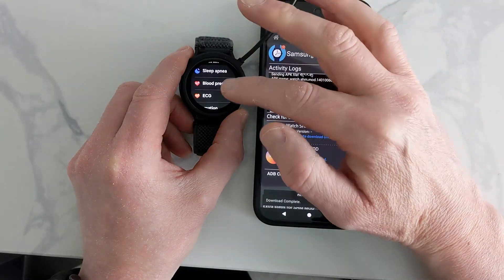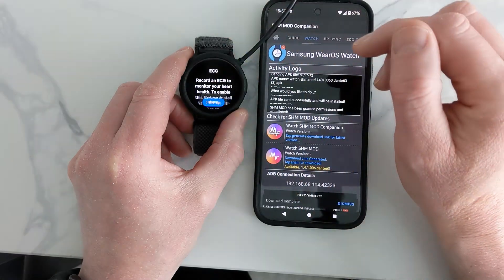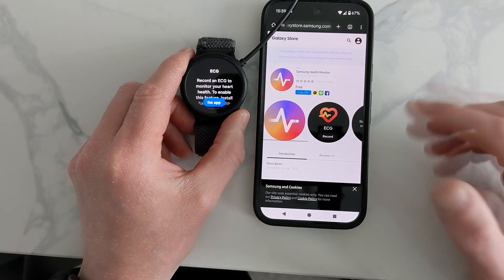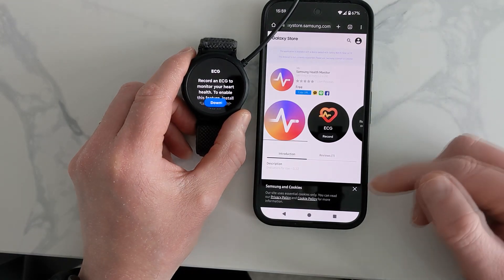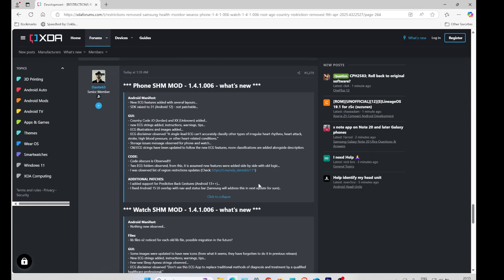Hello, in this video I'm going to go through a fresh install of the app on the watch and on my non-Samsung phone, because a lot of people in the comments have been saying they're having problems at certain stages, mostly right at the end. So hopefully I'm going to troubleshoot it and show you exactly how to do it. Also, on this fresh install, he's actually updated the app, so it's a brand new update, and we'll see how it goes.